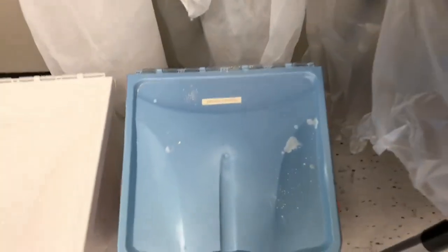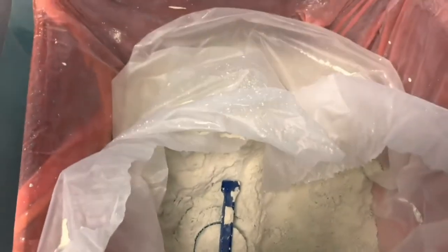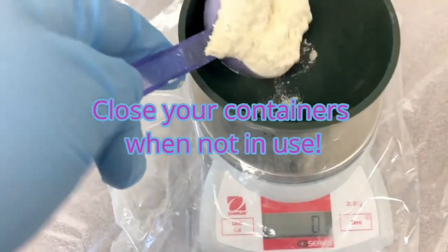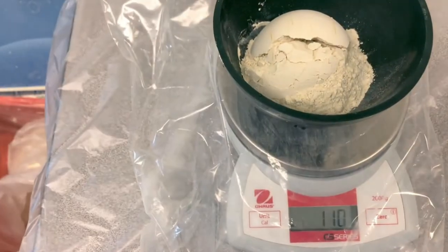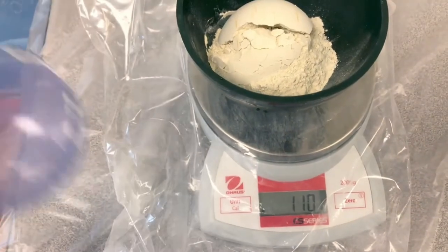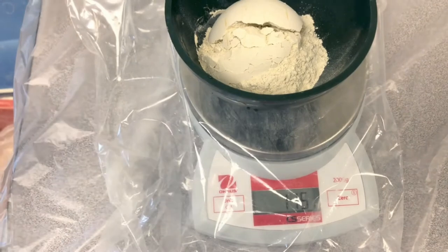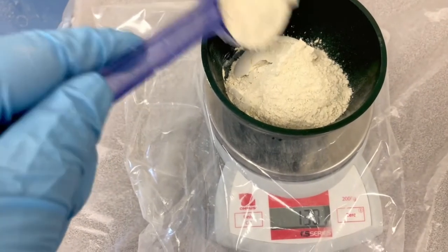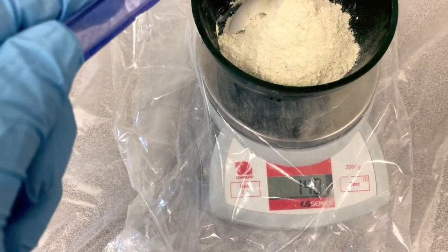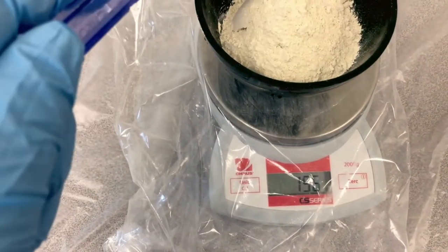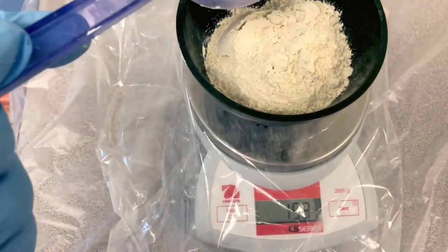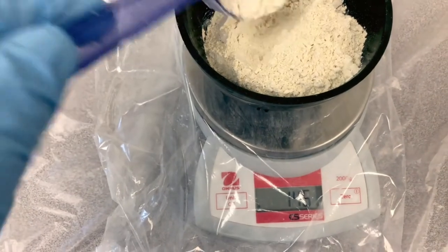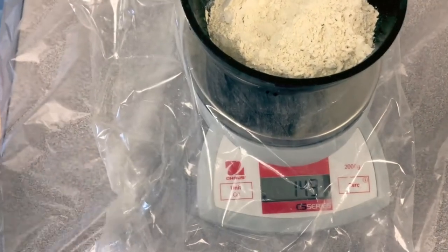Because I need 150 grams of powder, I don't care how much the bowl weighs. I just want to weigh the powder. Take your scoop, go into the dental stone container, scoop out and always keep this closed. Get your powder into the bowl. Try not to spill on the outside because if you spill on the scale itself, it will record that weight even though it's not in your bowl. You need 150, so it doesn't have to be precise. Plus or minus a couple of grams won't be a huge deal. So we'll call that good at 149.